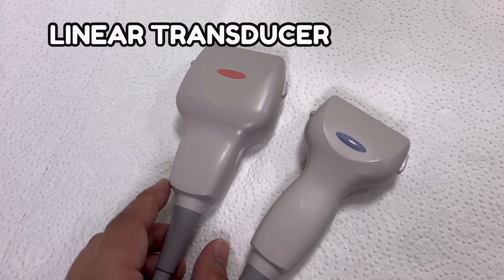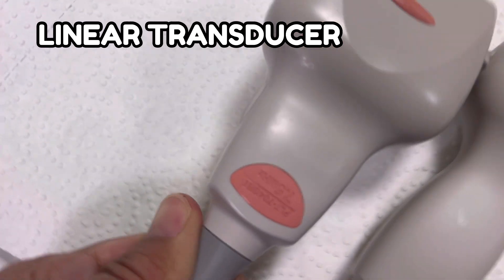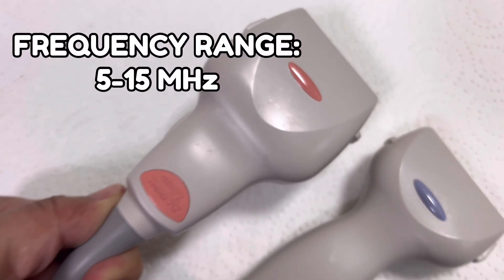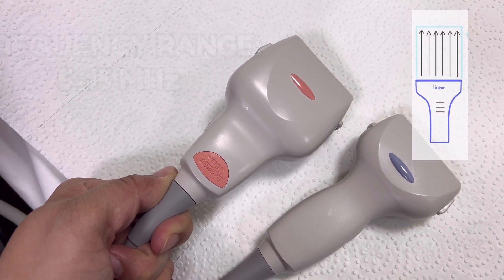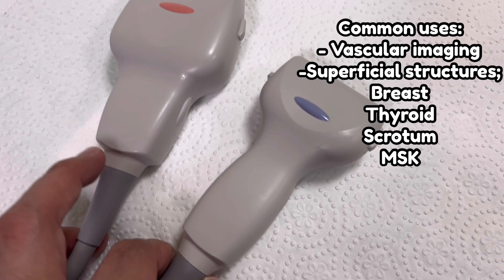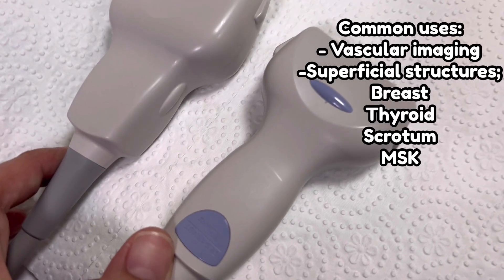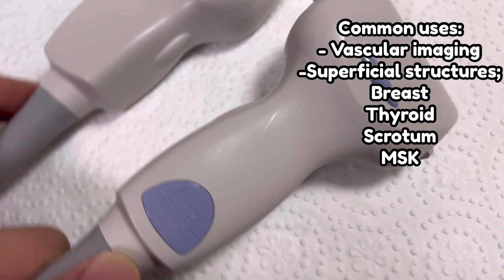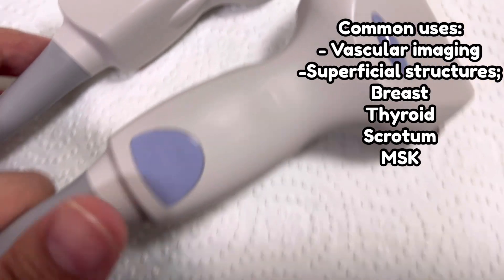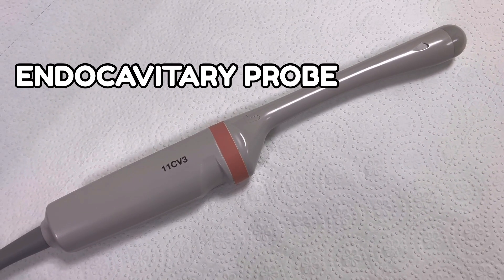The next type is the linear transducer. It has a high frequency that can capture images located superficially, usually ranging from 5 to 15 megahertz. A straight sound wave is produced by a flat array of crystals. It is suitable for vascular imaging and procedures like needle placement and guidance. It can also scan small superficial structures like the thyroid, breast, and muscles.